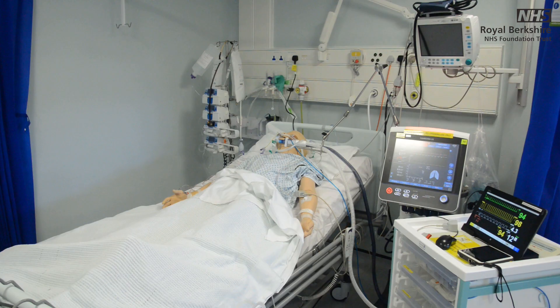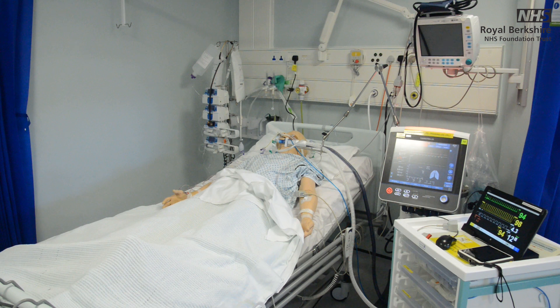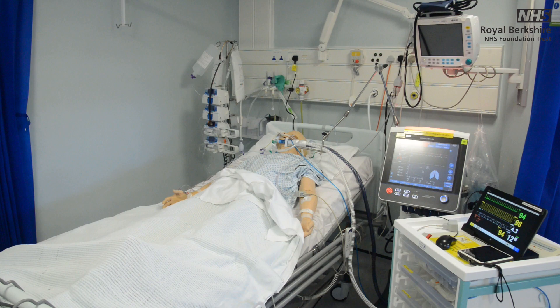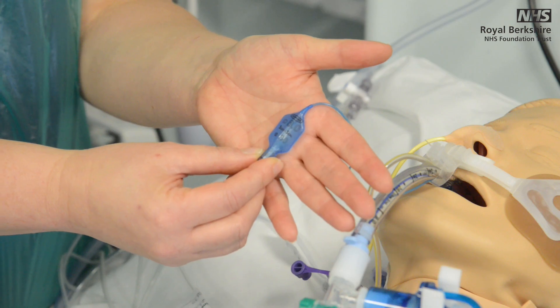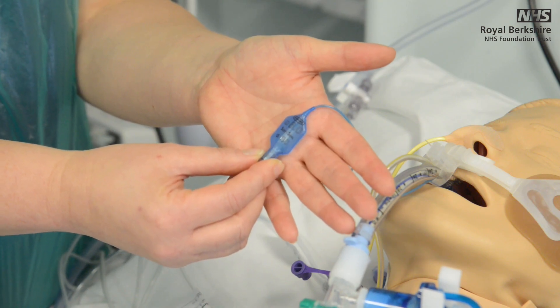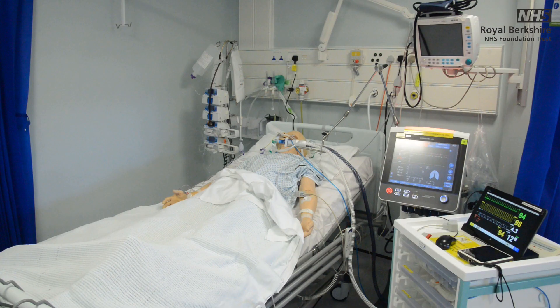The size of the tube must be checked to ensure the correct size suction catheters are used for both endotracheal tubes. The size will easily be identified on the cuff balloon, which each tube will have. These may differ between trusts.